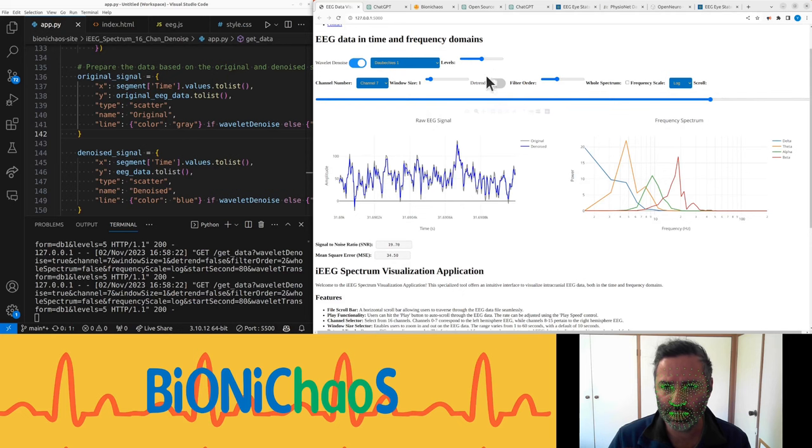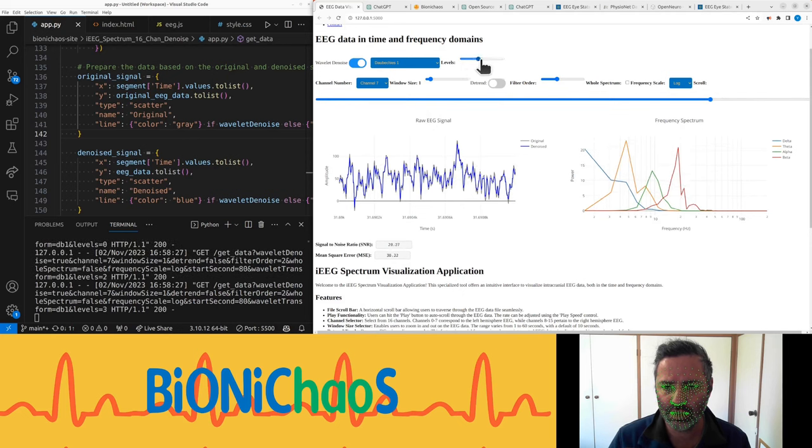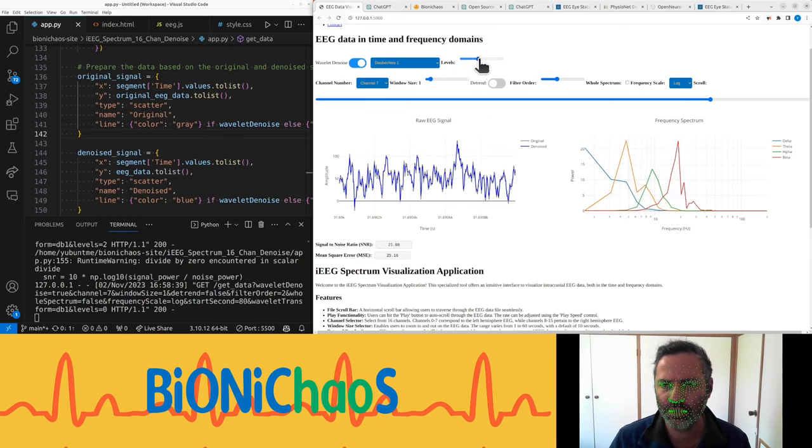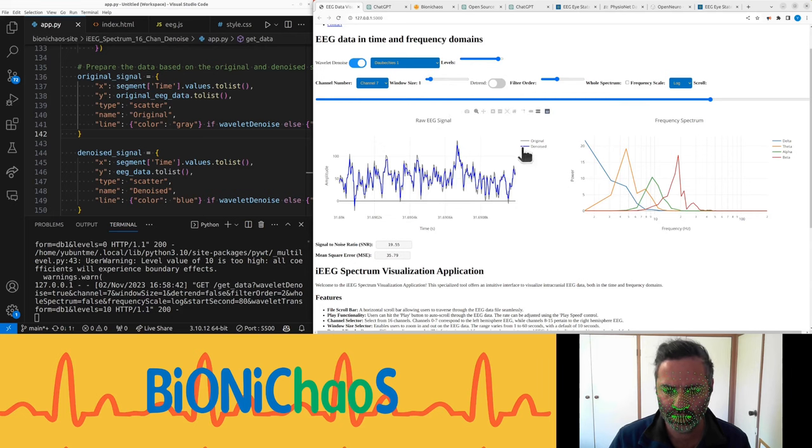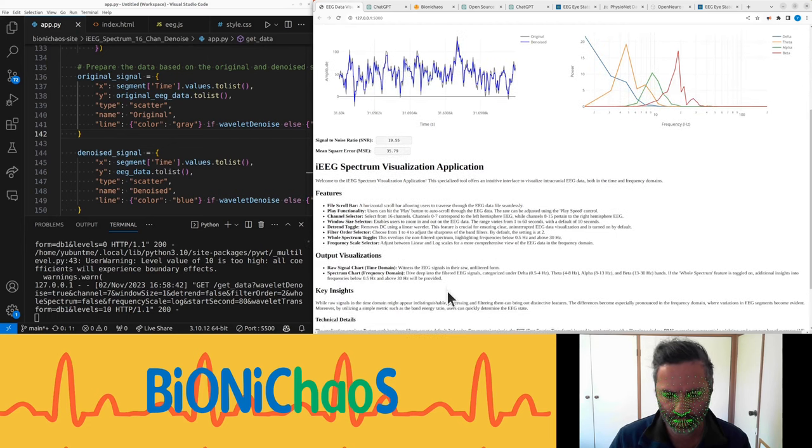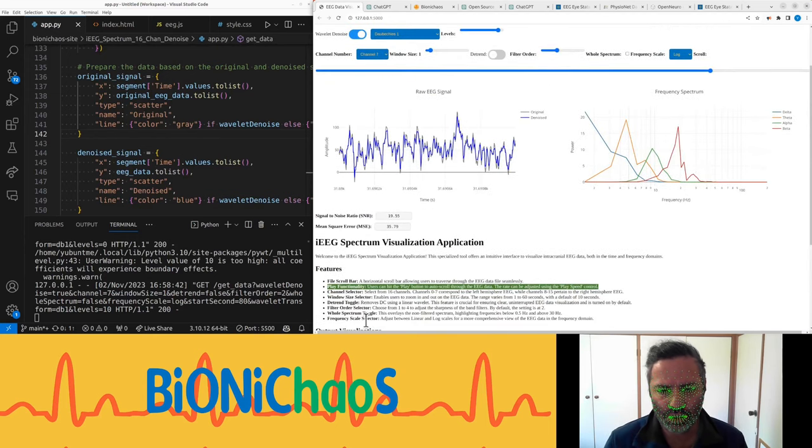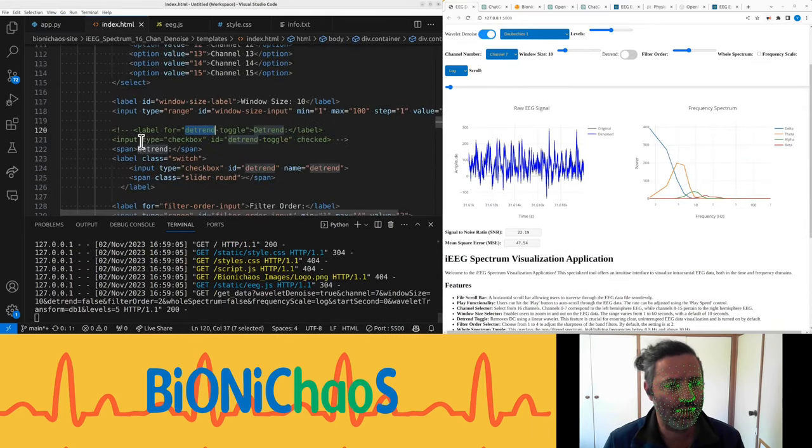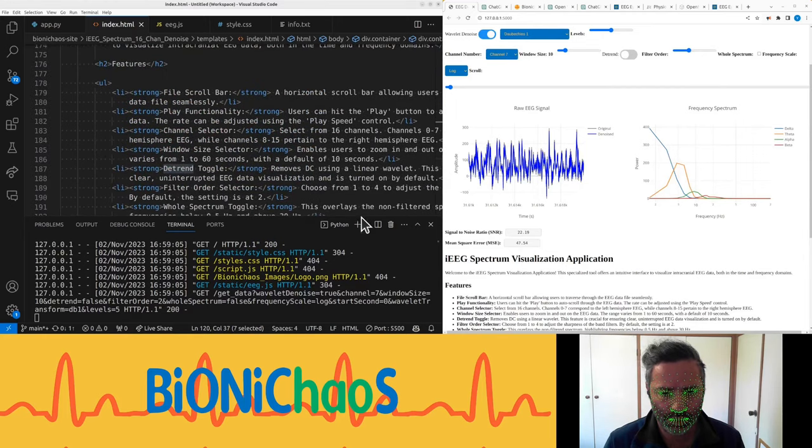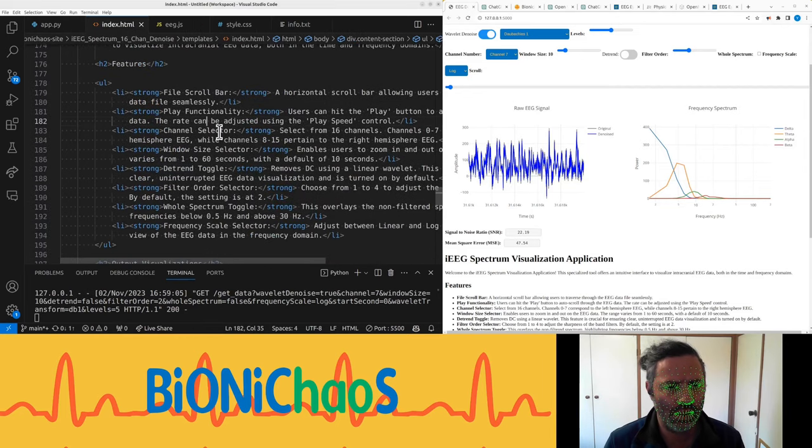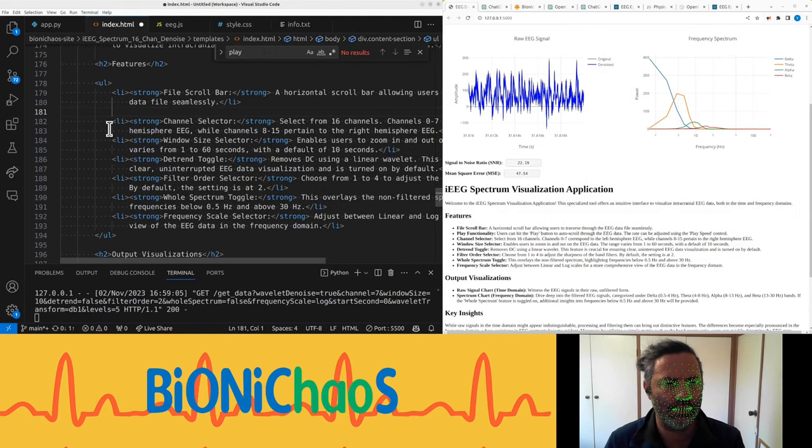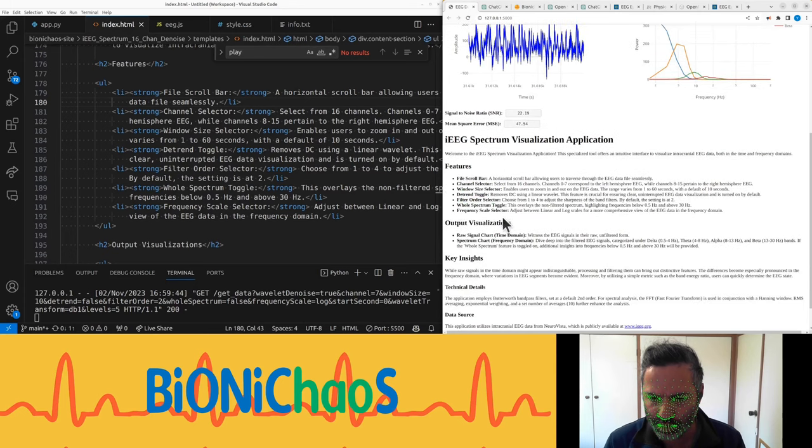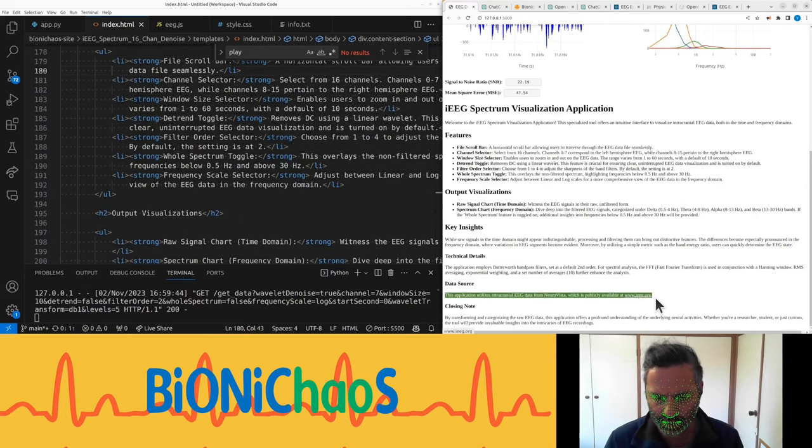And obviously there's many more things that we can be doing. This caption has taken a lot of space because it's there would be a lot of dead space underneath it and that's not cool. We do not have play functionality so we can remove it from the HTML description. We can do it ourselves, we don't need GPT to help. Let's just search for play, play speed. Channel selector yes we have, filter order, all spectrum toggle, frequency scale, that's all legit.